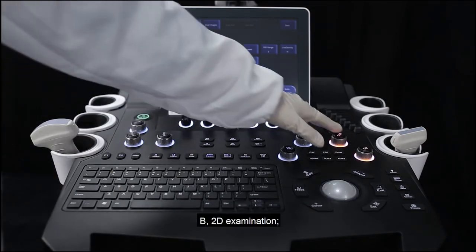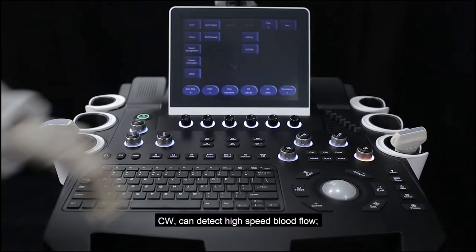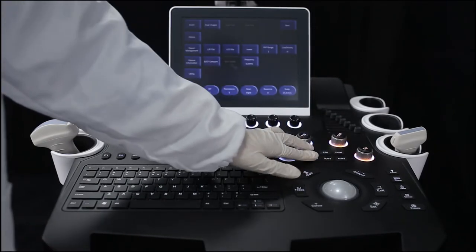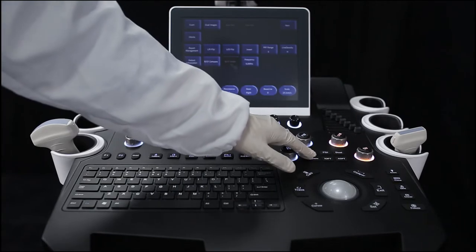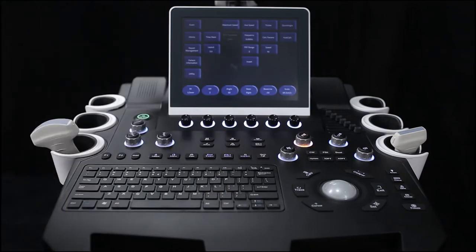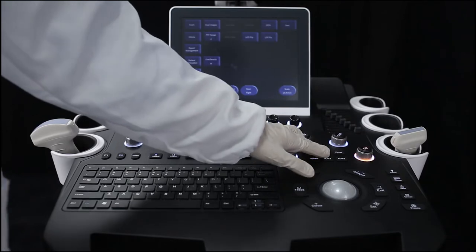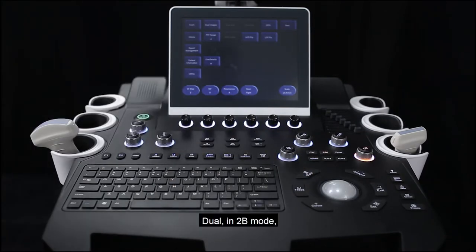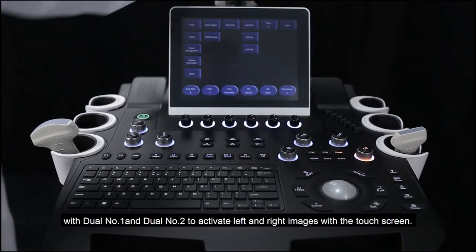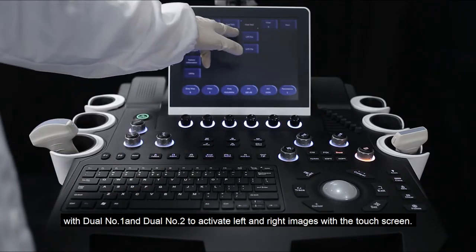B mode is used for 2D examination. CW can detect high-speed blood flow. PDI is energy Doppler. Dual enables 2B mode, which can be used for image comparison using dual number 1 and dual number 2 to activate the left and right images with the touch screen.